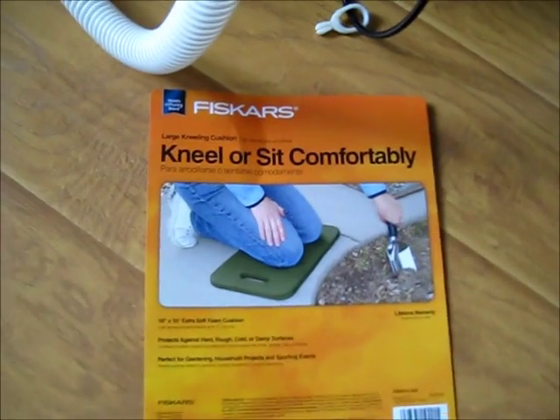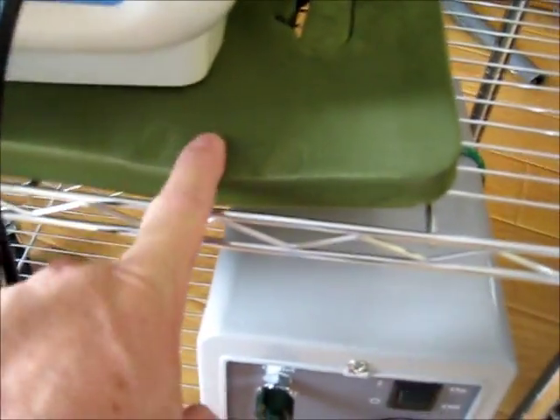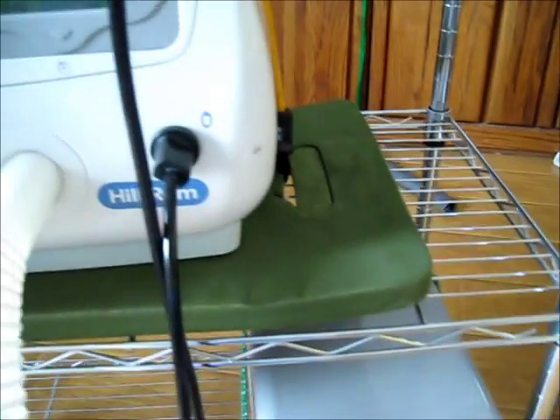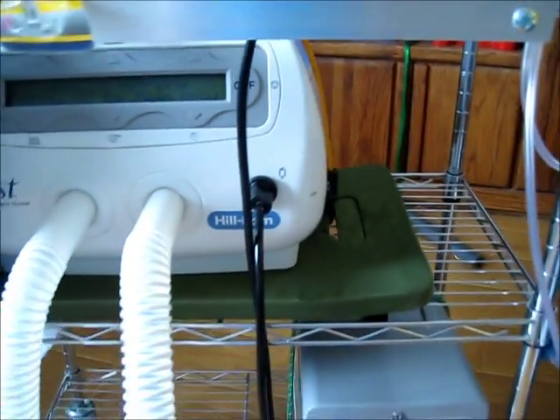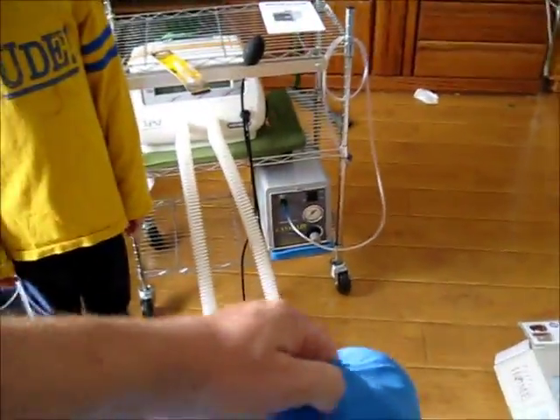The other thing I did is I put these kneeling pads from the garden section — it was at Home Depot, probably $5.50 or so. You can see them here; it really just gives a good cushion support on the unit and with the cart. Then I put a bungee around it — I'm sure you can come up with better straps. I was trying to go low budget, and obviously the vest is easy to hang there, and when Michael puts it on it's going to come out here straight. It's nice and easy.